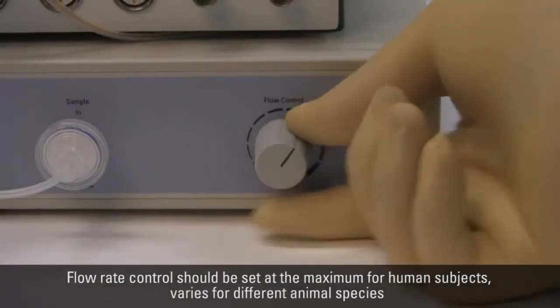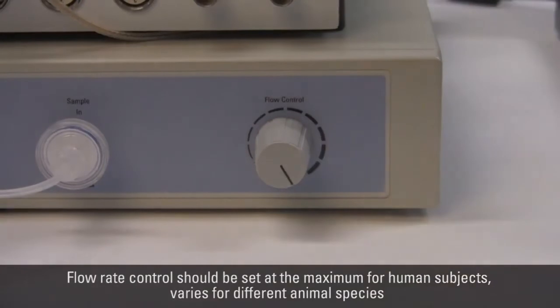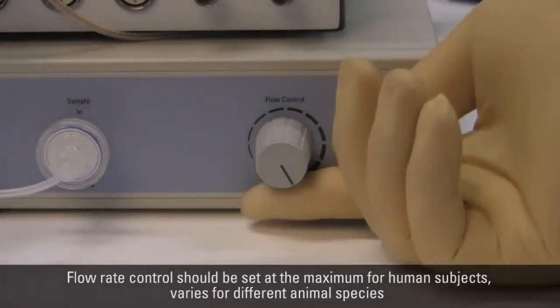The Gas Analyzer flow rate should be at the maximum when using it for human subjects or at the midpoint for use with animals.